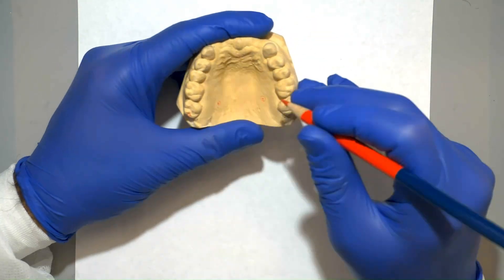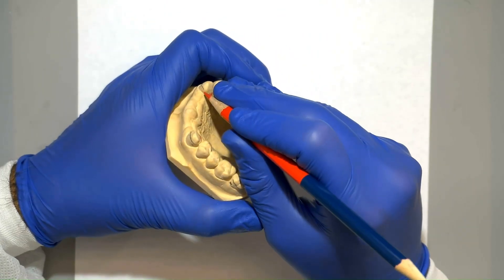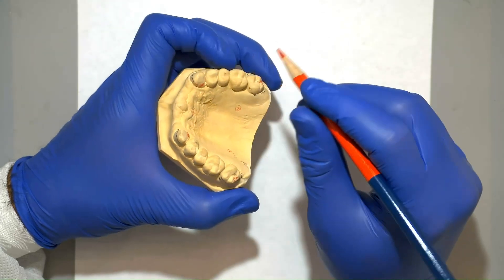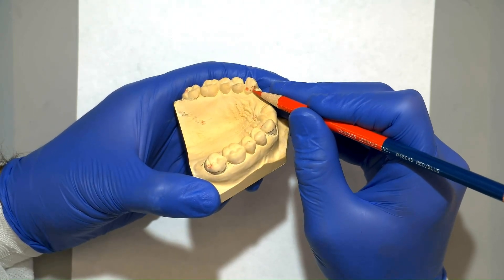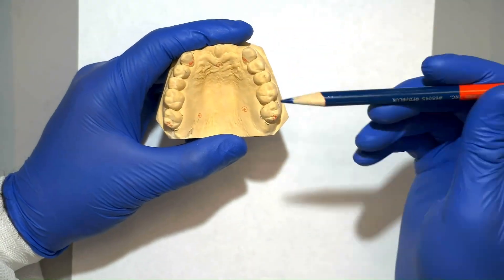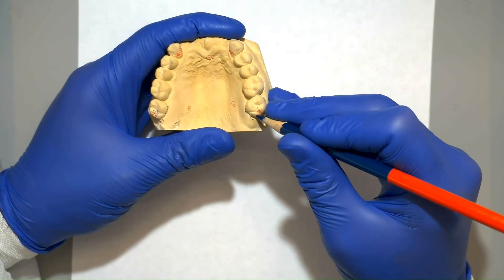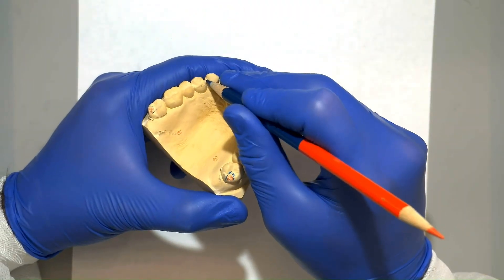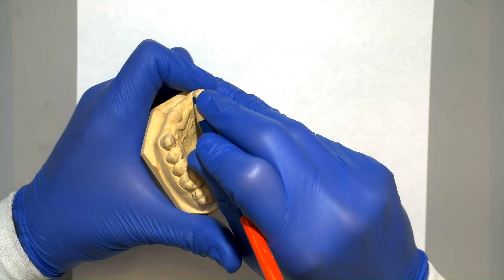We can now transition to drawing the same design but on the cast. We will start by drawing our rest seats in red. The next thing to do is to draw the areas of the guide planes. Red denotes areas included in mouth preparation — that includes areas like guide planes and undercuts that are going to be added or adjusted on the patient's mouth. Next, we're going to start drawing the framework in blue, following the same steps we did on the paper drawing, starting with the rest seats.